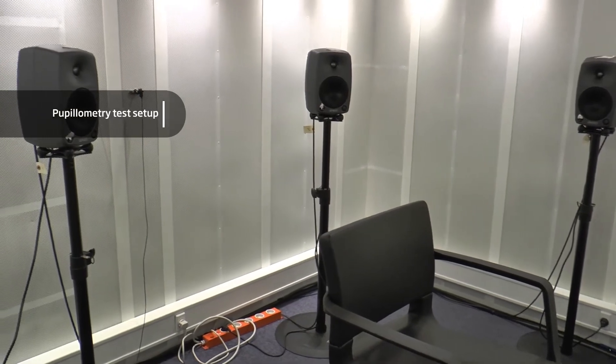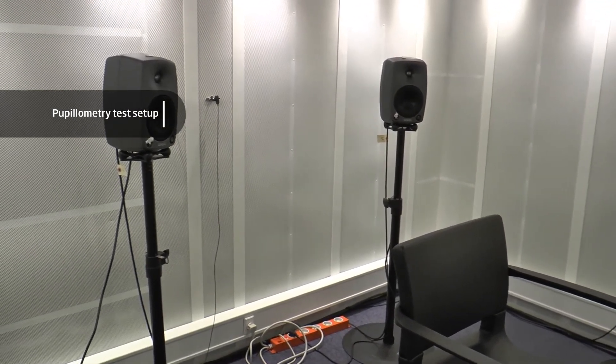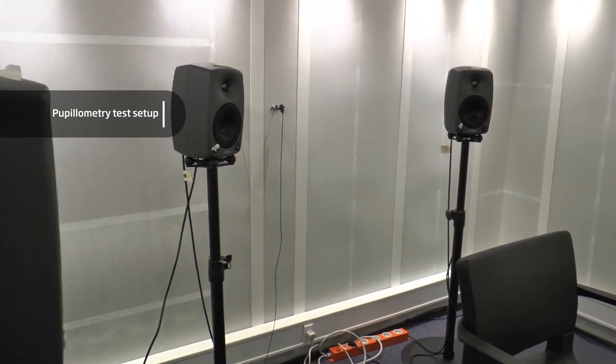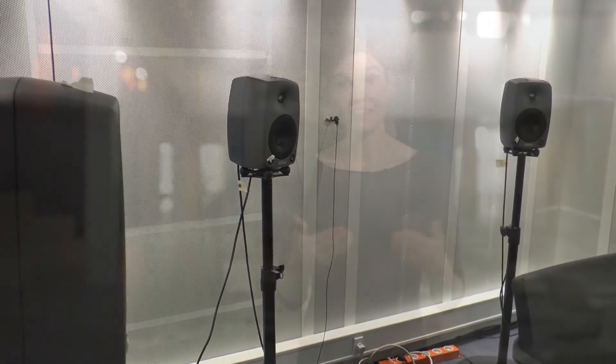With a specific setup of loudspeakers around the listener, it is possible to create a listening situation with high complexity. At the same time, we use the eye tracker to measure the cognitive load on the listener's brain.